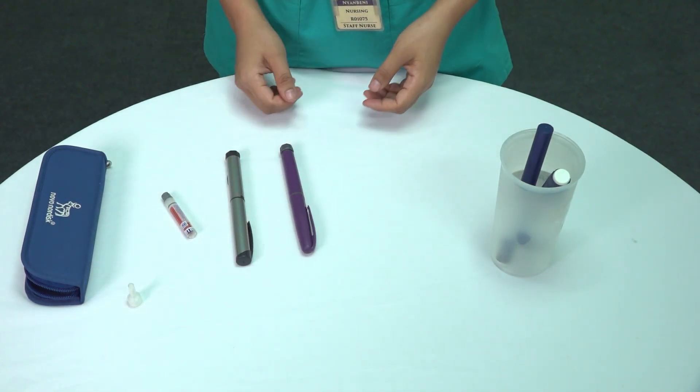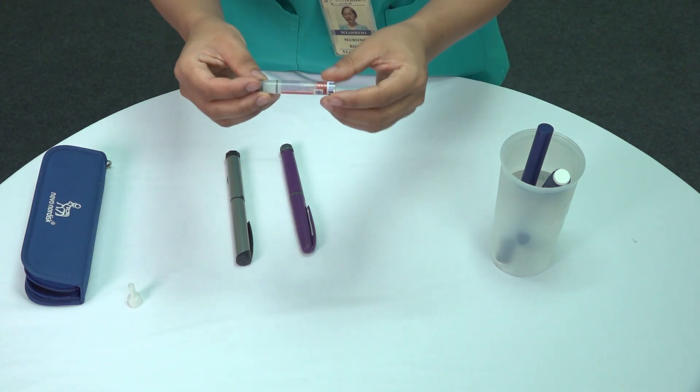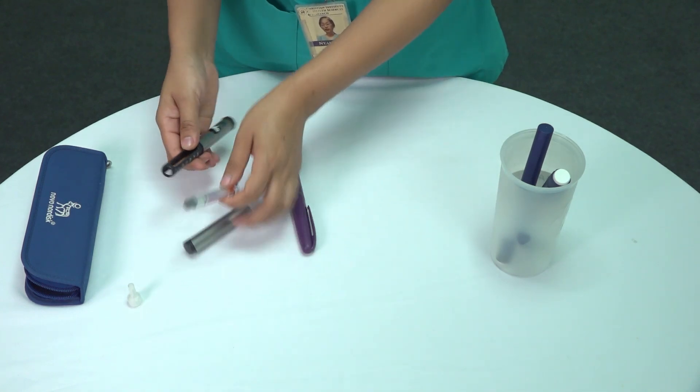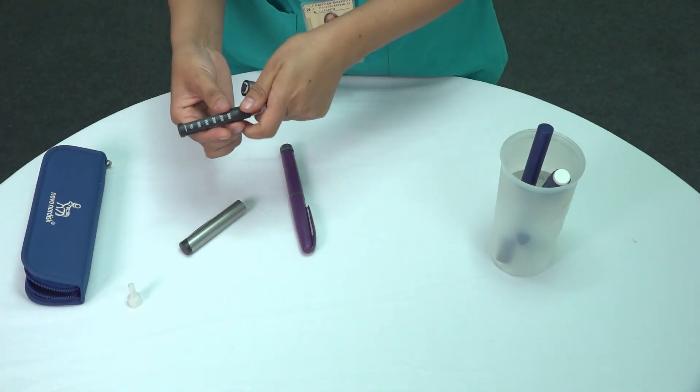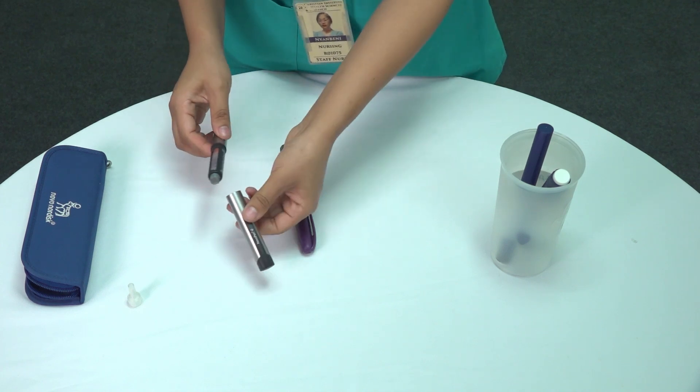Always ensure the insulin cartridge is compatible with the pen being used. Each pen is designed for specific cartridges, so double-check that they match before use. Also, remember to always purchase pen fill needles separately.